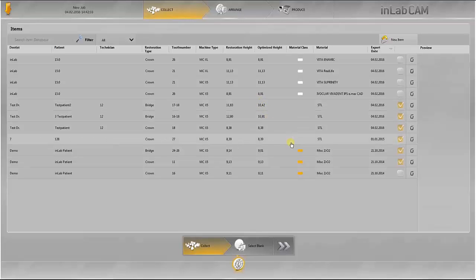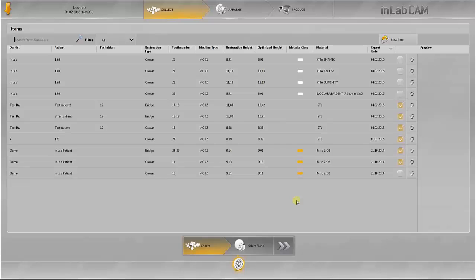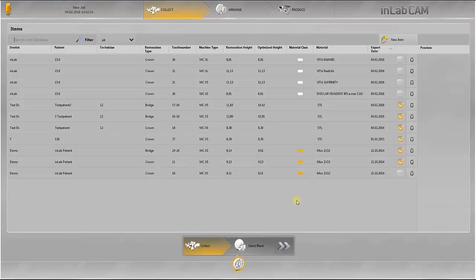Such optimization is performed both for imported STL files and for InLab files. The aim of optimization is to achieve an optimal result with minimal material consumption by calculating the lowest restoration heights in the blank.